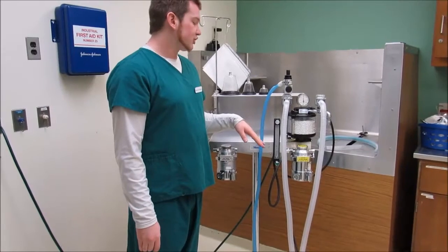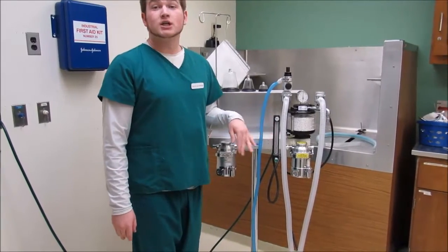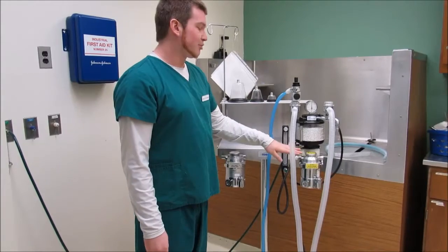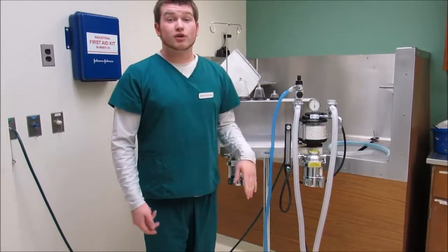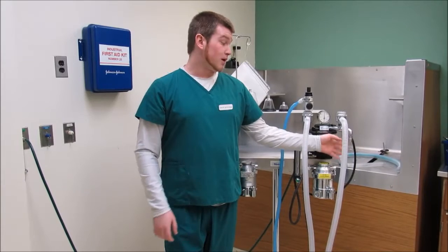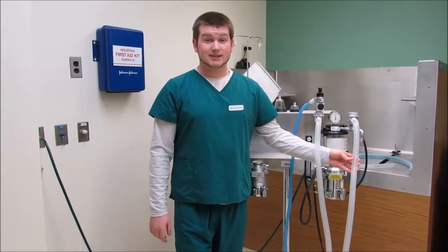So I'm going to start with the oxygen flush valve first. The oxygen flush valve brings the patient direct oxygen. So it bypasses the rest of the system. So no CO2 canister, no vaporizer. So it goes to the unidirectional inspiratory valve to the patient. It is useful for giving the patient a breath of fresh air, or it is useful if you need to dilute your gases.